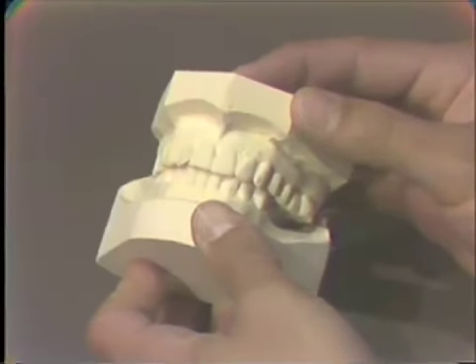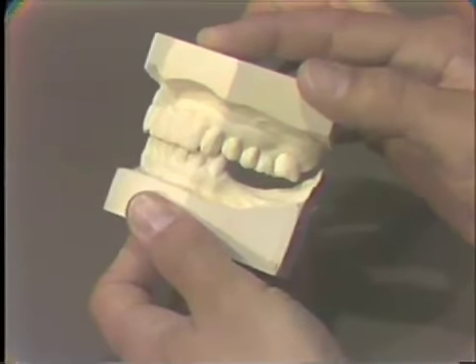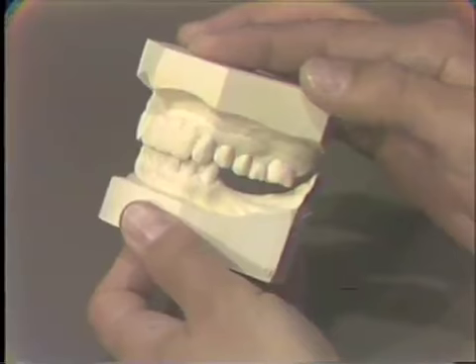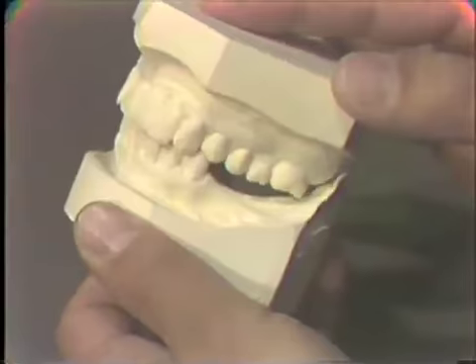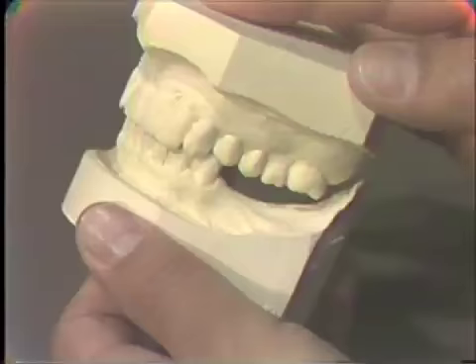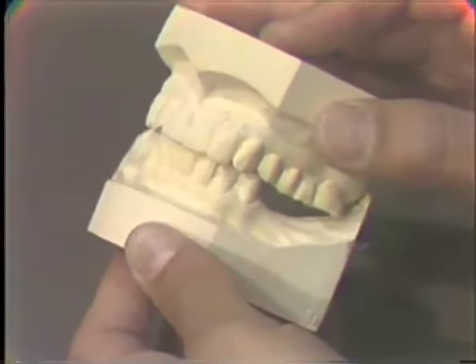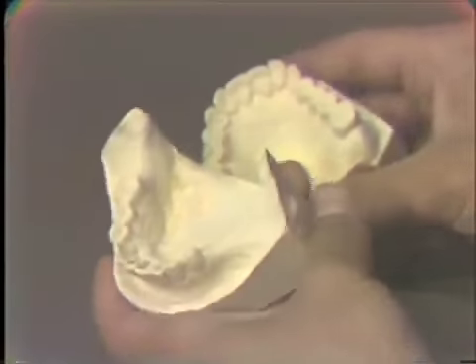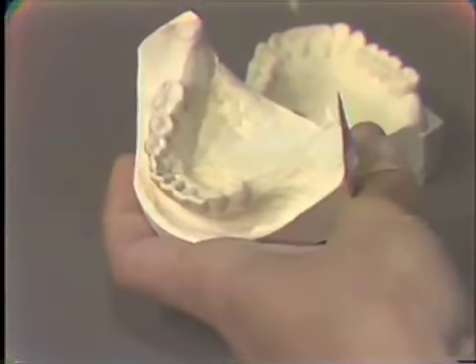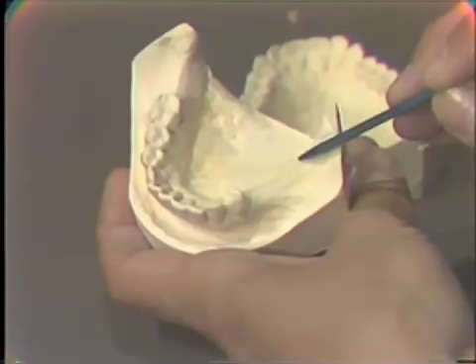Diagnostic casts of the partially edentulous patient may pose a special problem when trying to mount them on the articulator. When you approximate the casts in the centric occlusion position, they may have a tendency to rock, and it will be difficult to find the correct position. This may also be a problem when mounting in centric relation at an increased vertical dimension with a wax bite, because the cast or the wax bite will not be supported in the partially edentulous area.